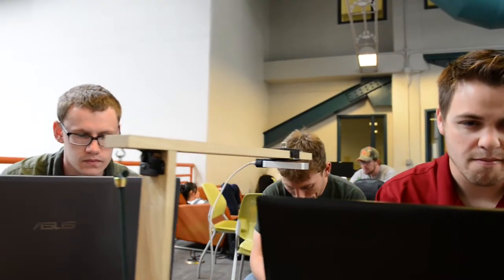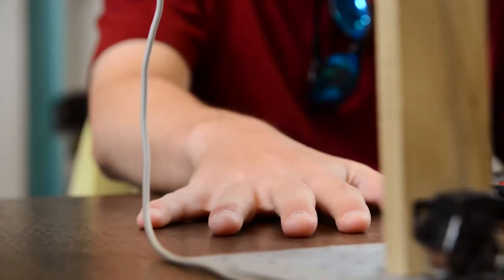When I first saw Betty and some of the other patients using the system, it definitely changed my perspective. Because when I would just be coding in my room and making the games, I'd be like, okay, this could work. And I'd kind of try and move my arms slowly and limit myself to see how it was.